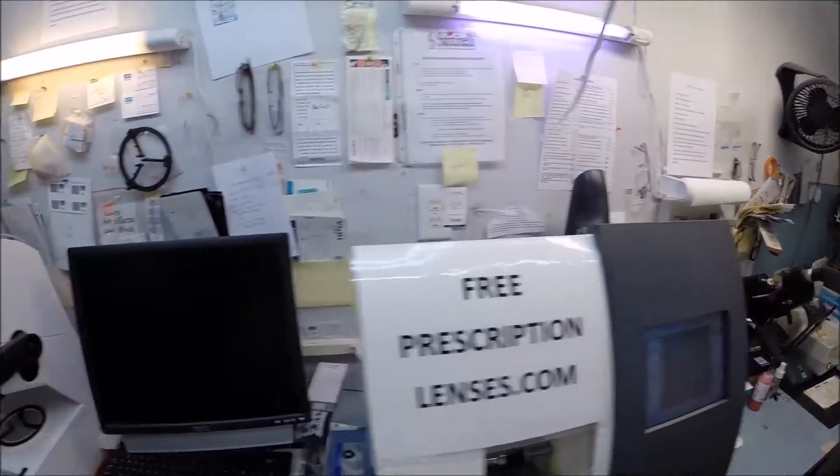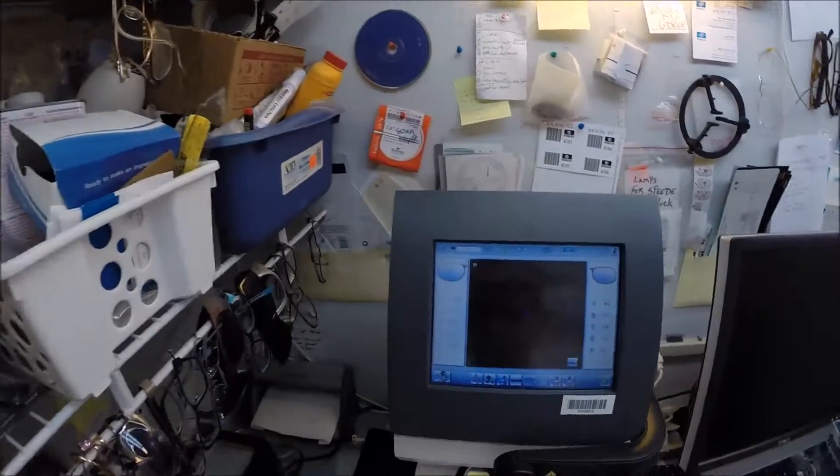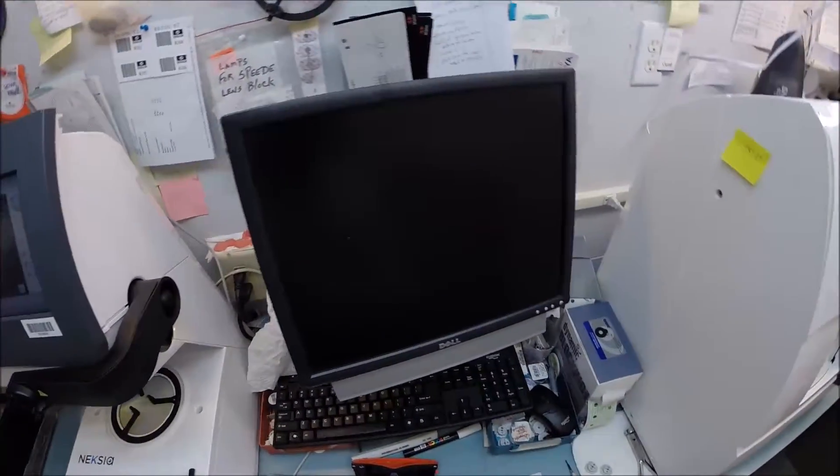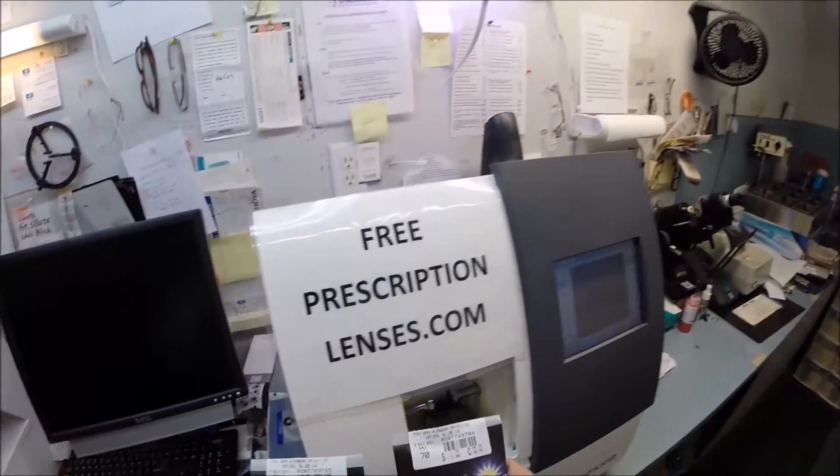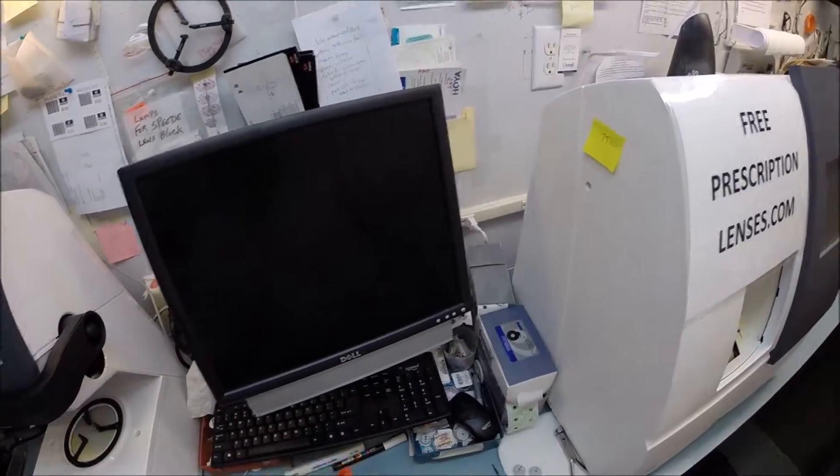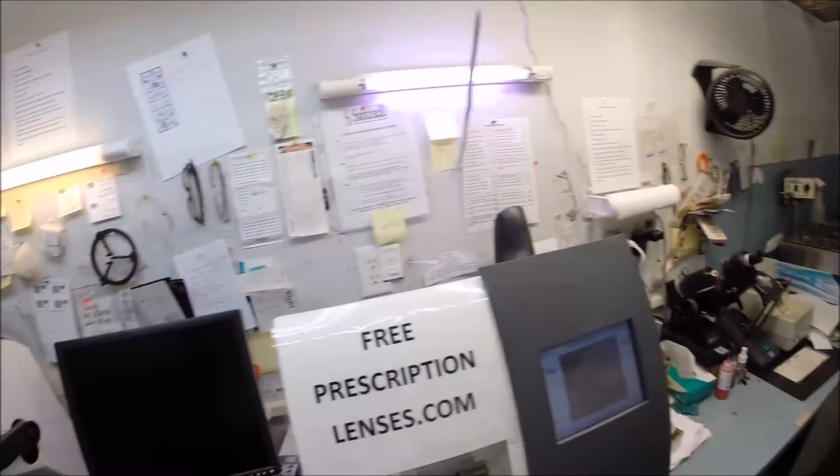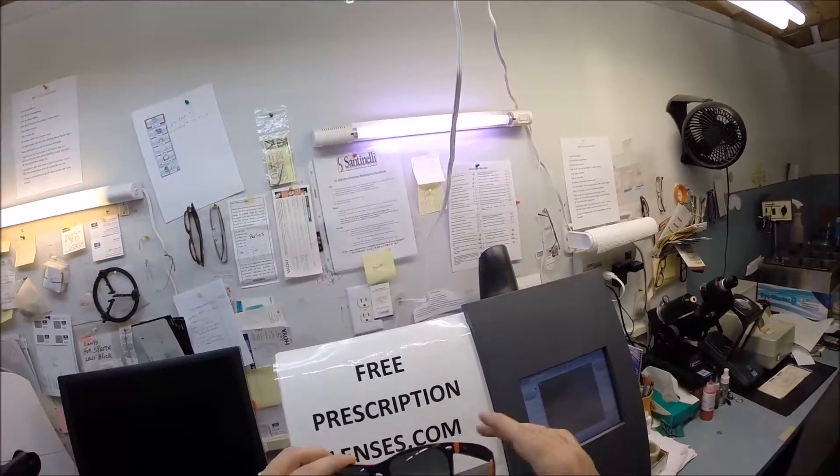Hey Joe in Chicago, Matthew here with FreePrescriptionLenses.com. With the help of my GoPro camera, I'm going to show you how I cut transition lenses with your prescription - transitions gray lenses with Crizal anti-glare for your Ray-Ban 2132 New Wayfarer in size 55.